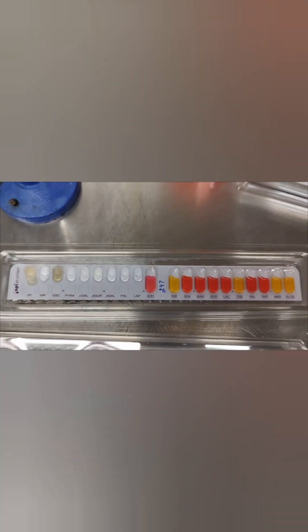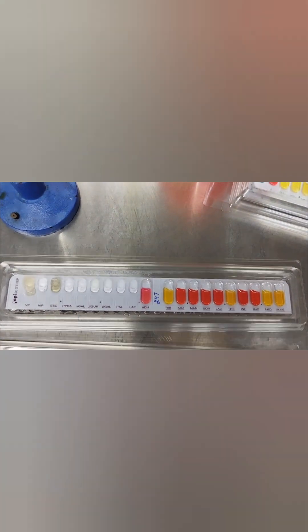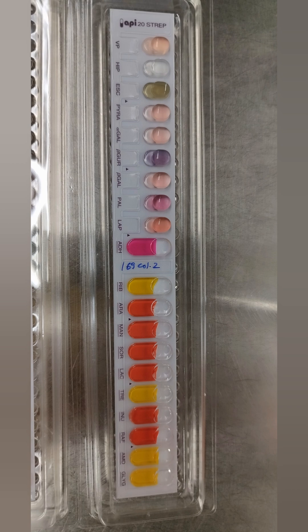Incubate for 37 degrees and take reading after 4 hours by adding reagent. This is the incubation tray.